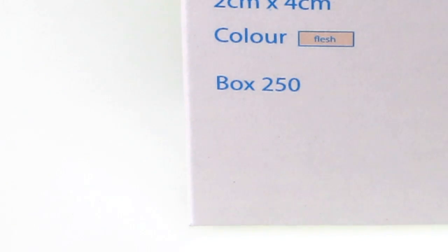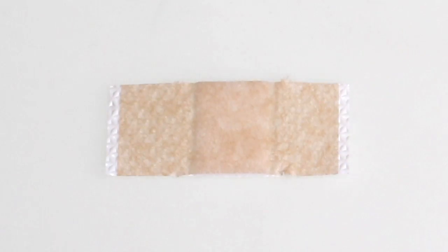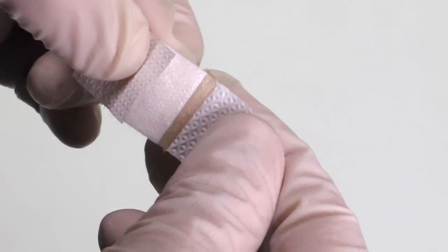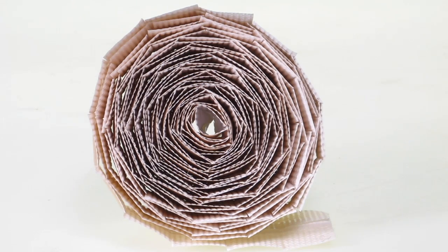The box contains 250 2 centimeter by 4 centimeter pre-cut and easily tearable strips that are especially suitable for laboratories of clinical analysis.